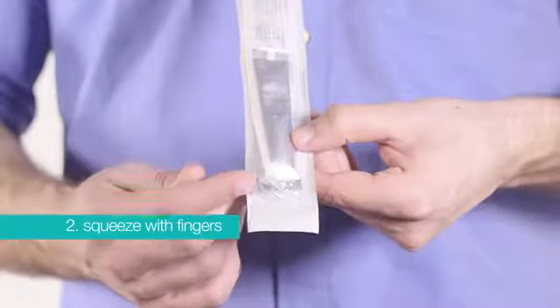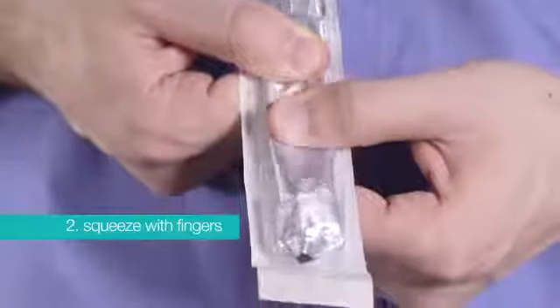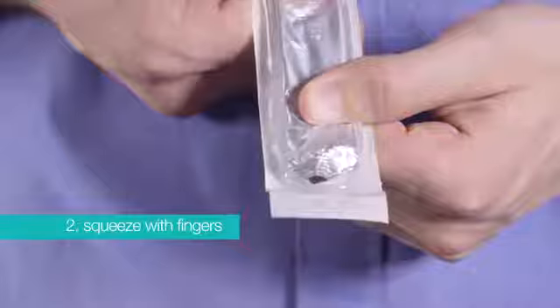Alternatively, place your index finger on the water sachet approximately halfway down. Then use your thumb to fold the sachet around your index finger and squeeze. Then let the water run down into the package.